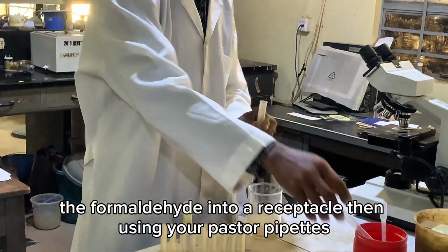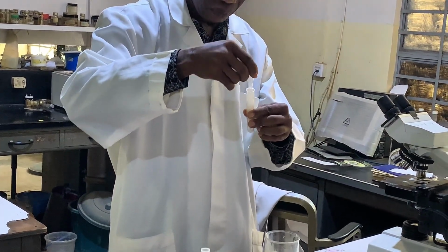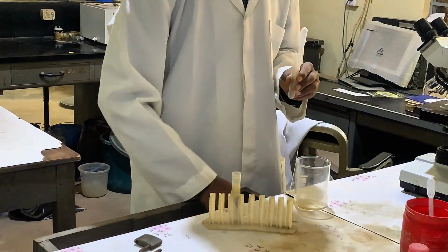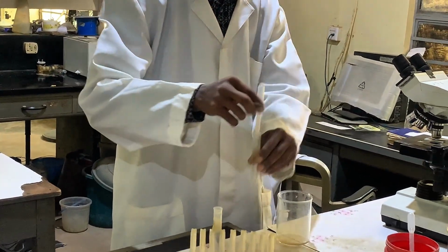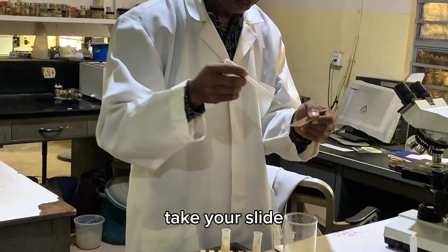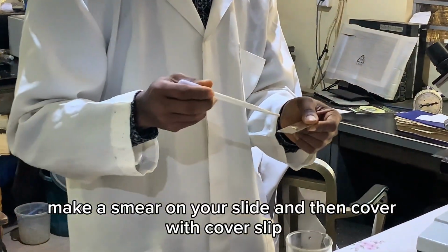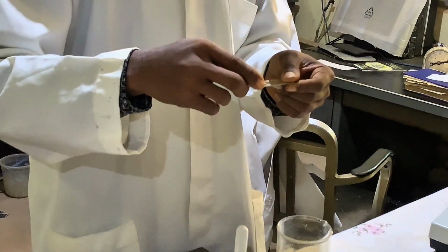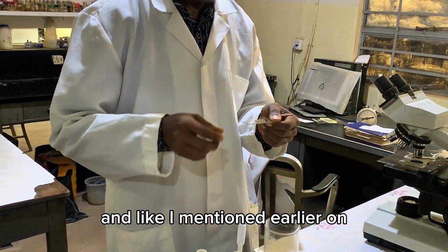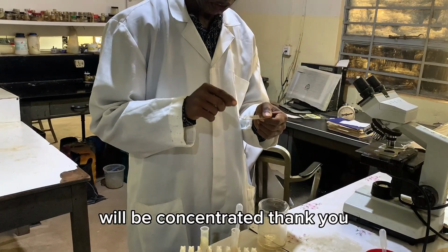Then using your Pasteur pipette, you just mix the sediments, pick the sediments, take your slide, make a smear on your slide, and then cover with a cover slip. The smear should contain our parasites. And like I mentioned earlier on, every parasite that might be present in the feces will be concentrated.